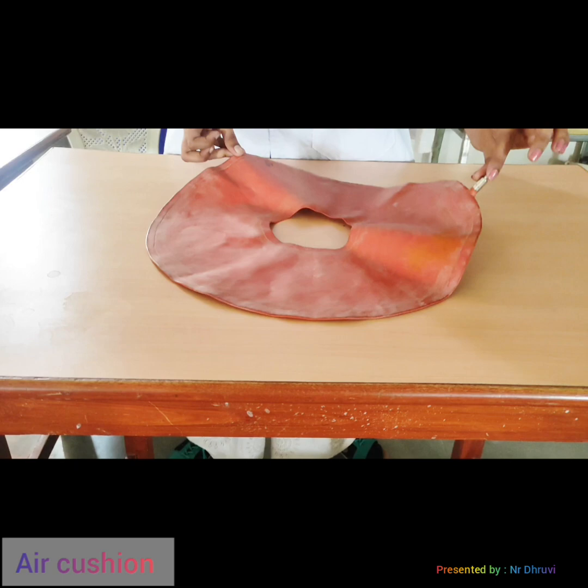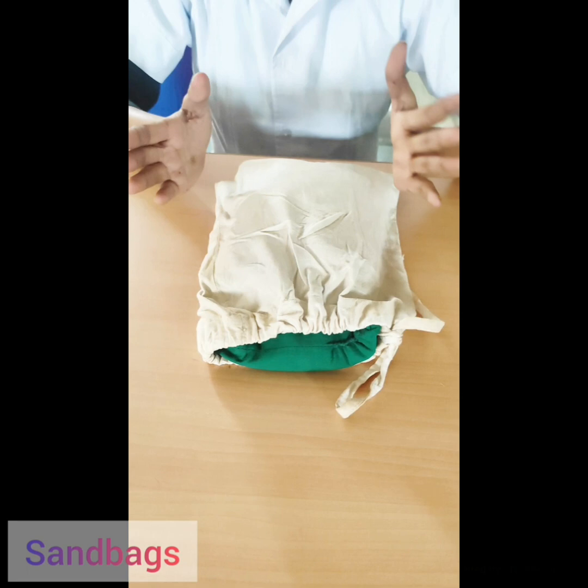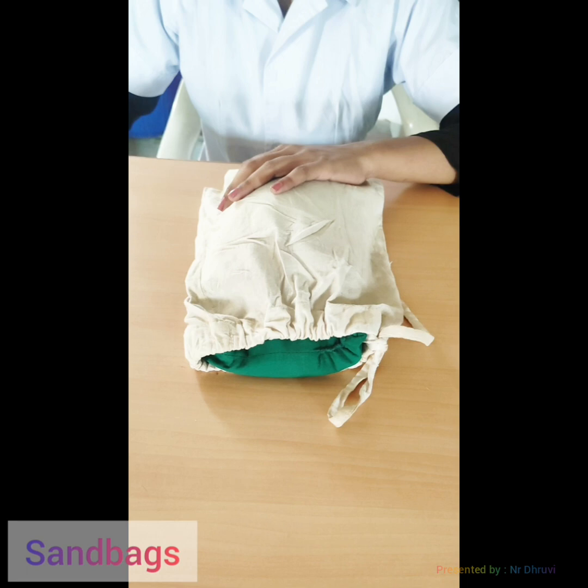This is a sandbag with a sandbag cover. Sandbags are sand-filled bags available in various sizes. They are used for applying pressure in case of bleeding, to provide support along the body contours, and to maintain specific body alignment.